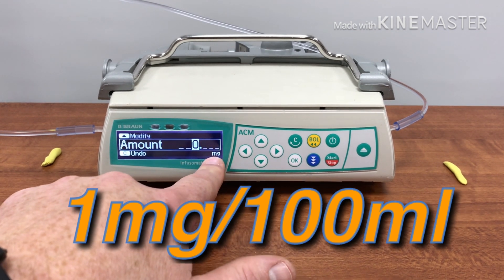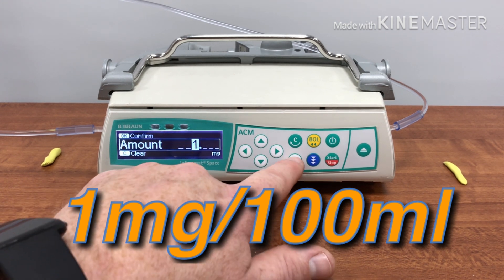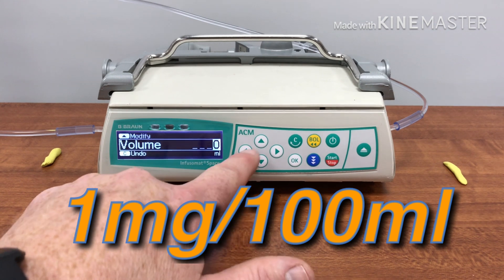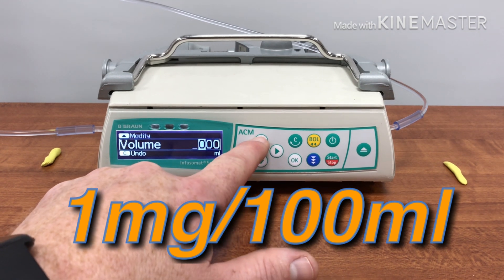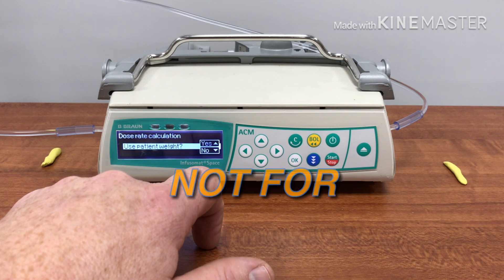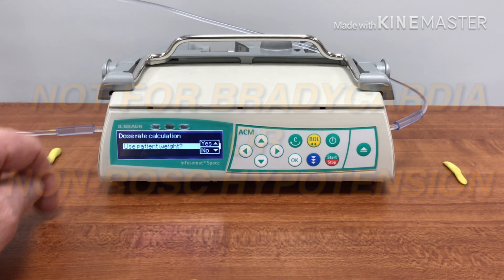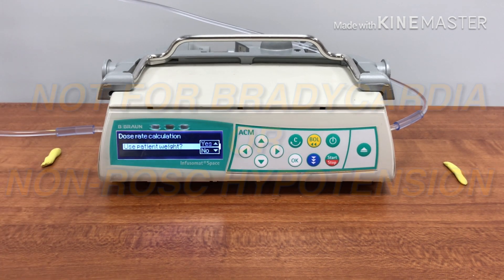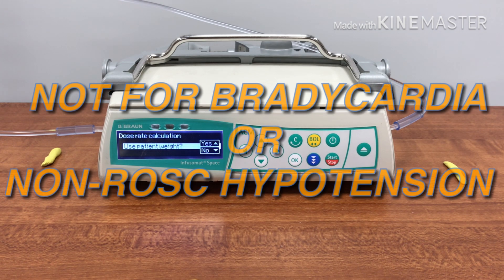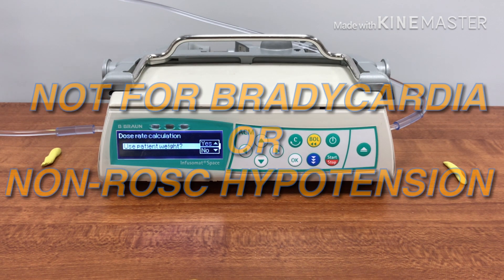What is the milligram amount? What is the volume? Is this weight-based? In bradycardia and the treatment of hypotension as a pressor, it is not weight-based.